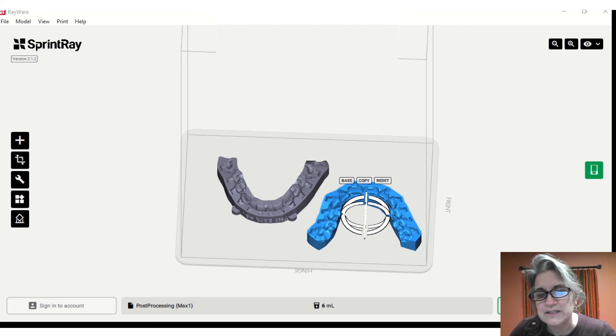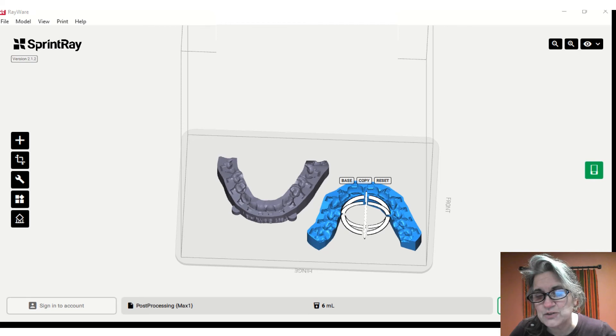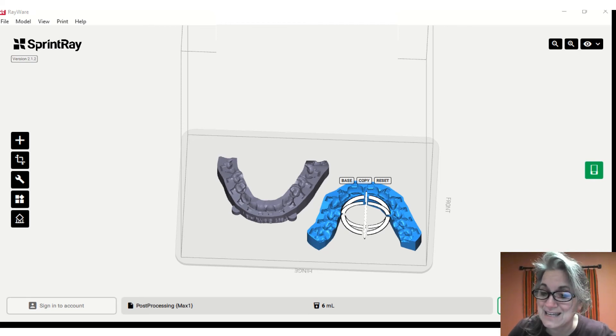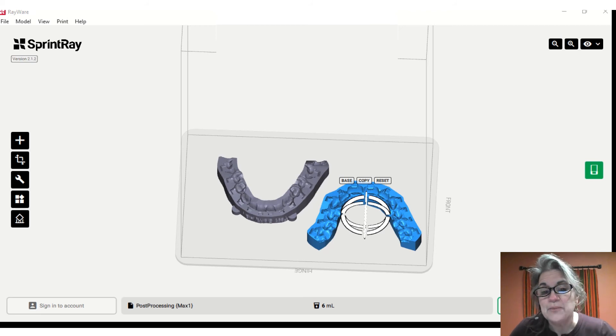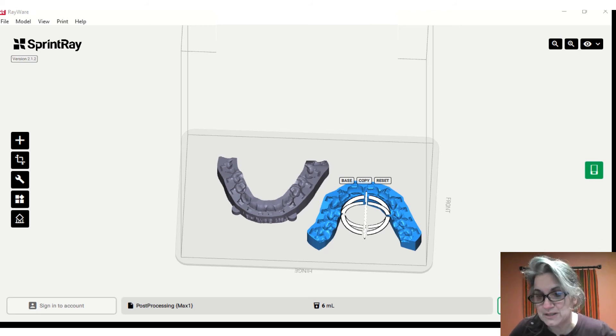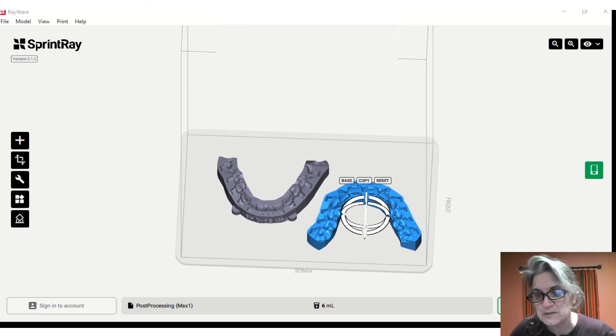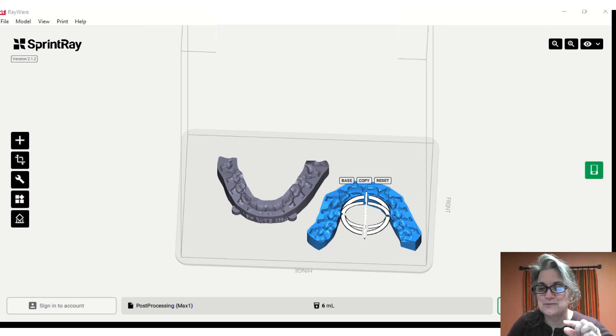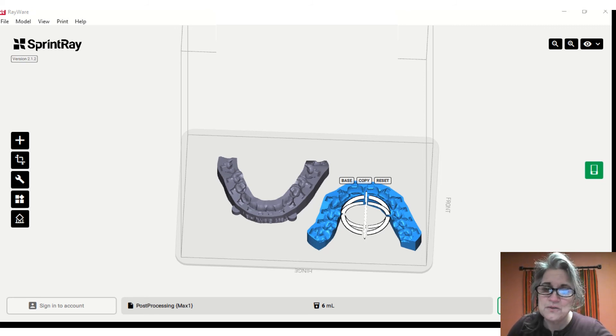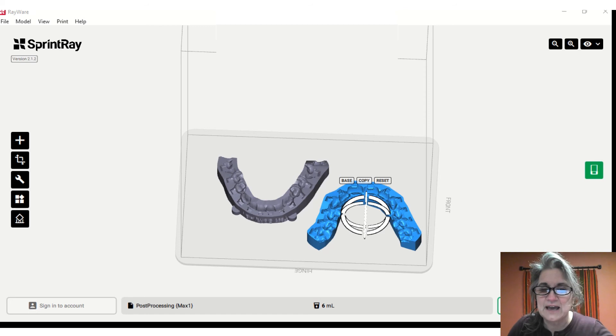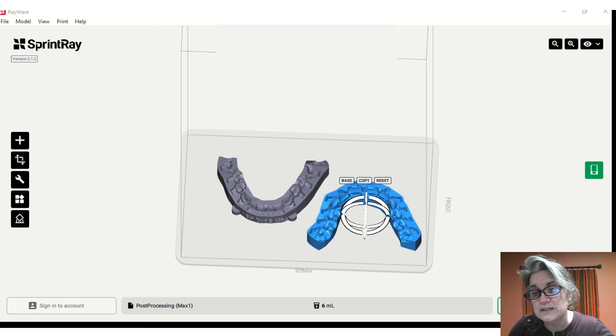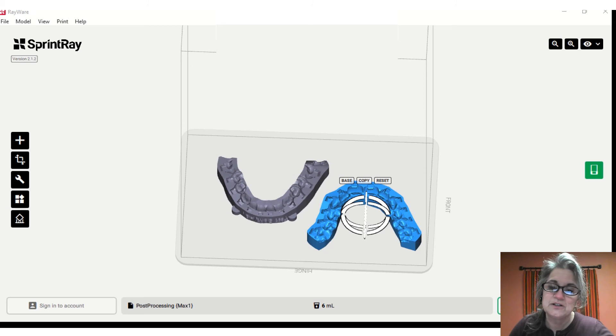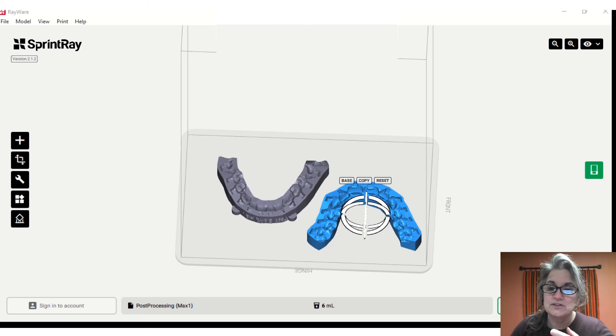Usually if I'm going to check myself, I take a look at each of my trays - they usually run between about six and eight milliliters. So it doesn't use a lot of resin, but what that helps me do is determine the thickness. Particularly when I first started, sometimes I'd print some that were very thick and some that were very thin. I know that if I'm going six to six in the average size arch, it's probably going to be about six milliliters. If I'm including sevens or a much larger arch, I'm going to be closer to eight.